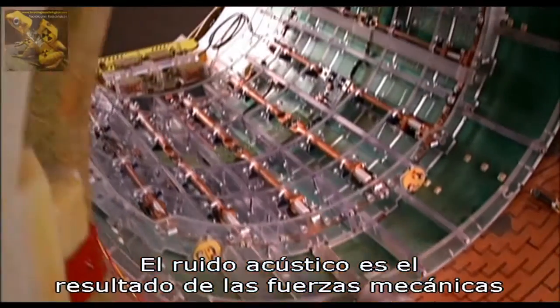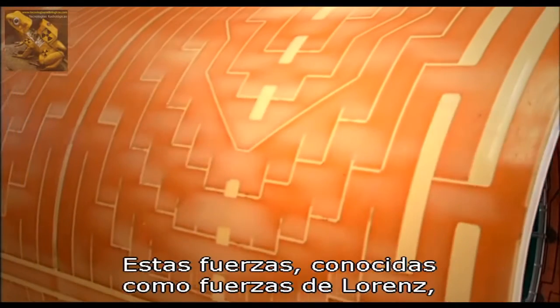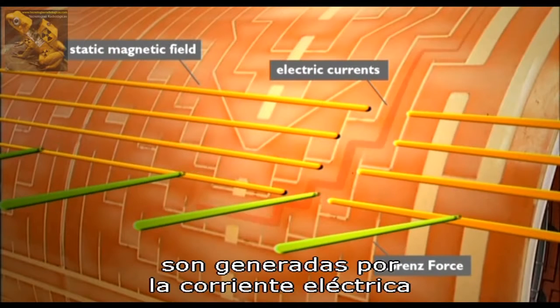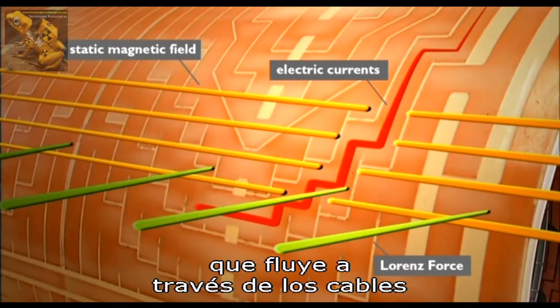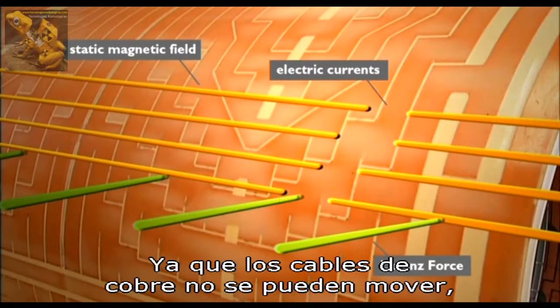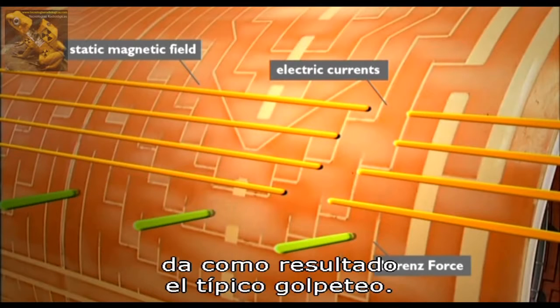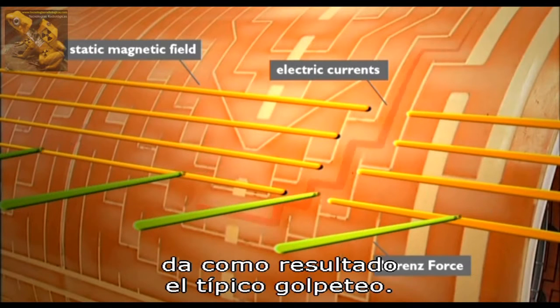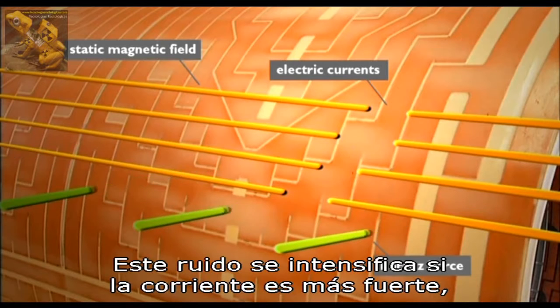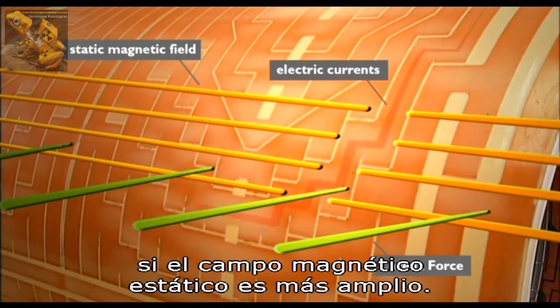The acoustic noise results from mechanical forces on the gradient copper leads. These forces, known as Lorenz forces, are due to high electric currents applied through the copper leads which lie within the static field of the main magnet. Since the copper leads are not free to move, the sudden application of force results in the typical knocking sound of the system. This sound becomes louder with higher currents, shorter switching times, and a higher static magnetic field.